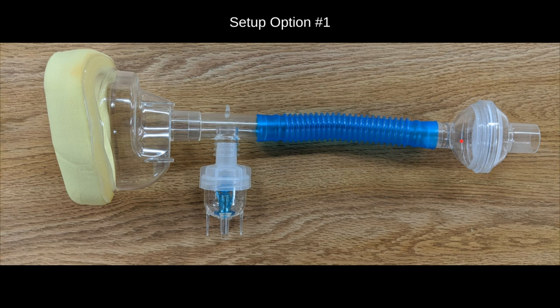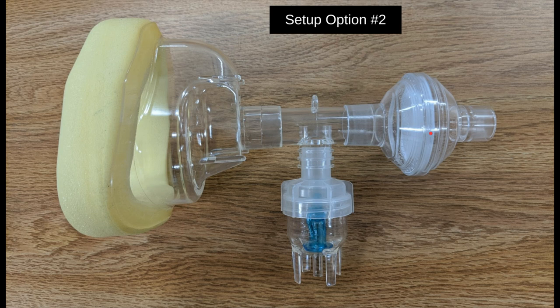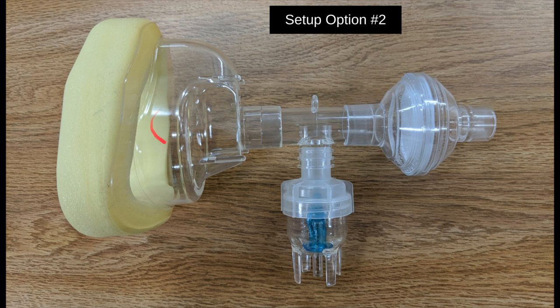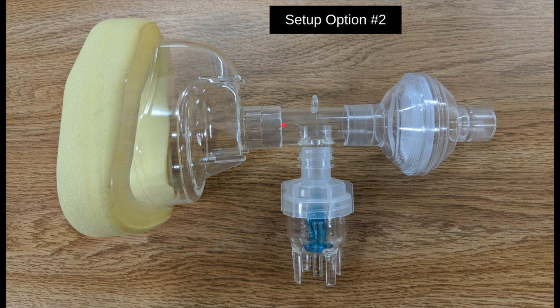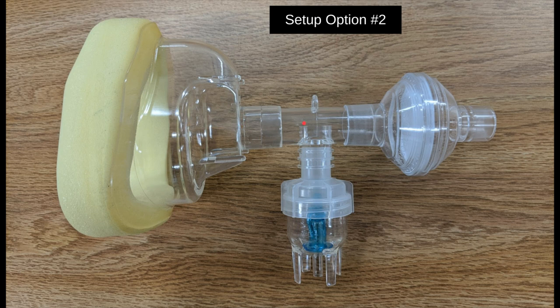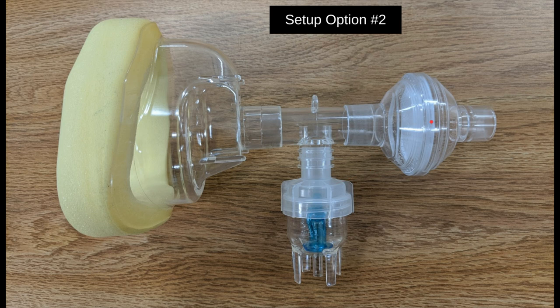Sometimes this additional length — the tube — can present some unique challenges. So here's a different or alternative setup option, eliminating that tube altogether. You'll have the CPAP mask, the T that comes in the normal nebulizer setup kit, the cup, and the HEPA filter.